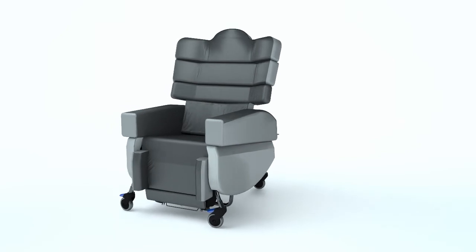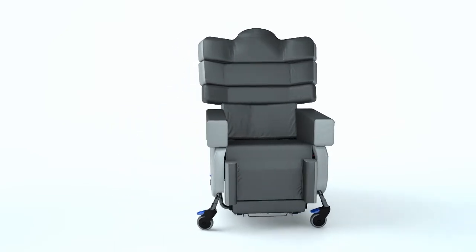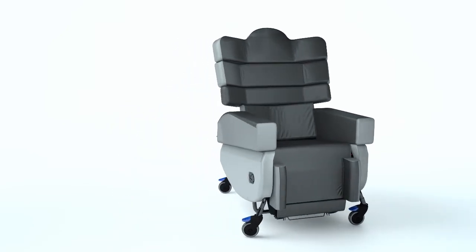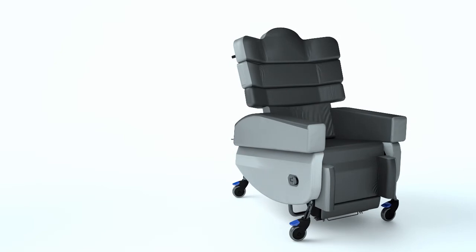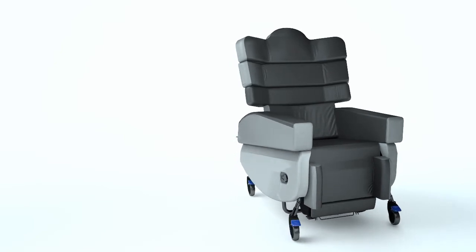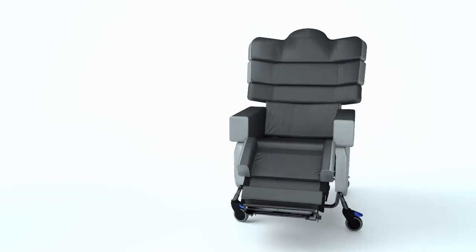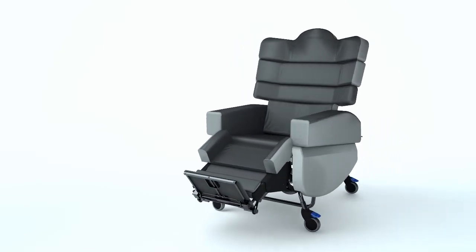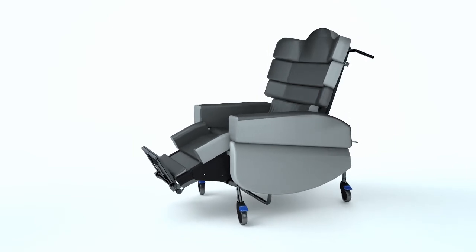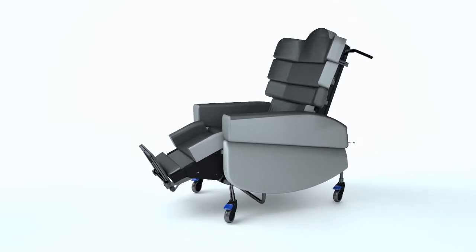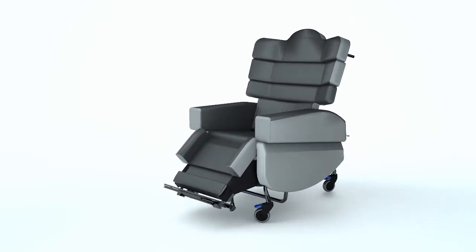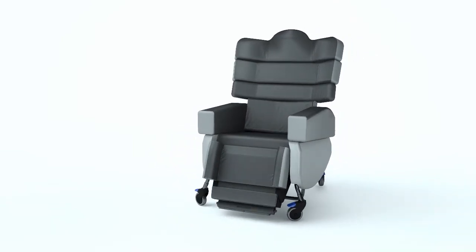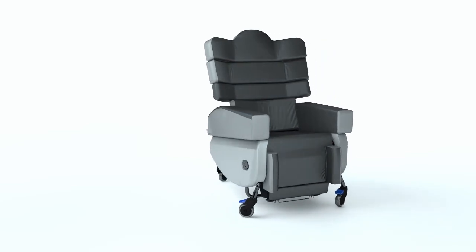This highly flexible chair is ideal for rehabilitation or for those with, or at risk of developing, complex or unconventional body shapes such as kyphosis, lordosis and scoliosis. It represents state-of-the-art technology offering maximum adaptability to optimize posture, function and comfort.